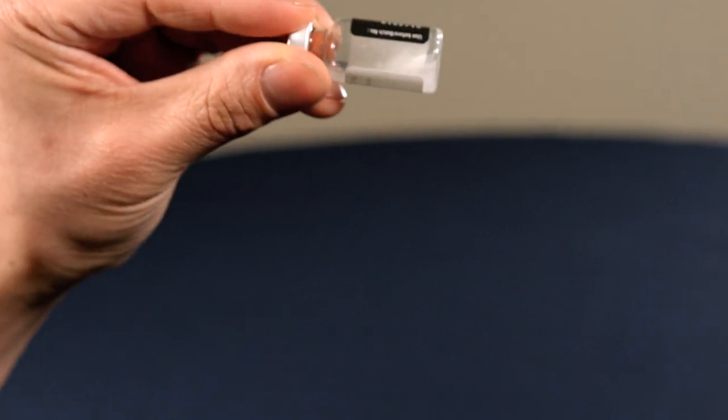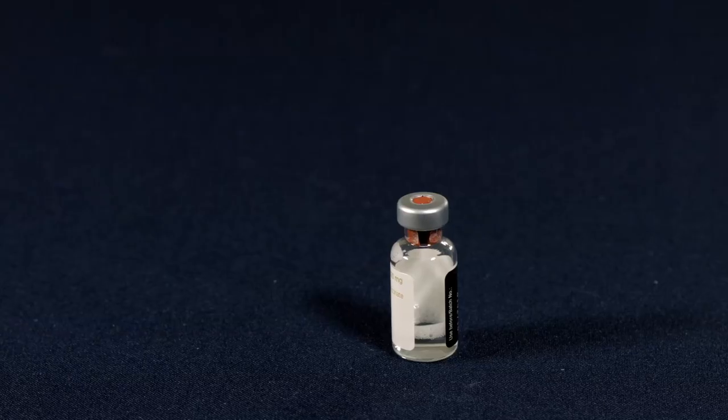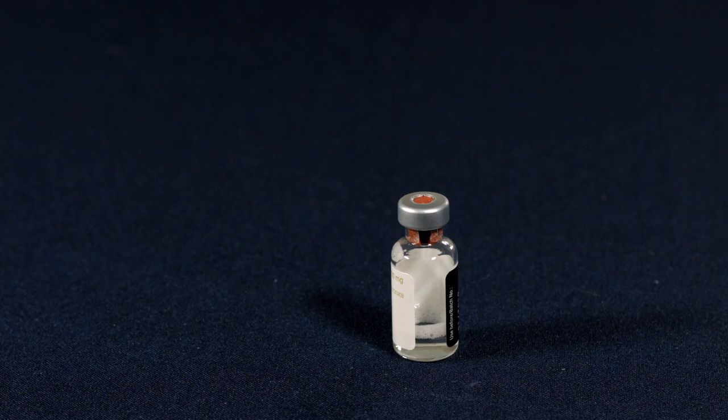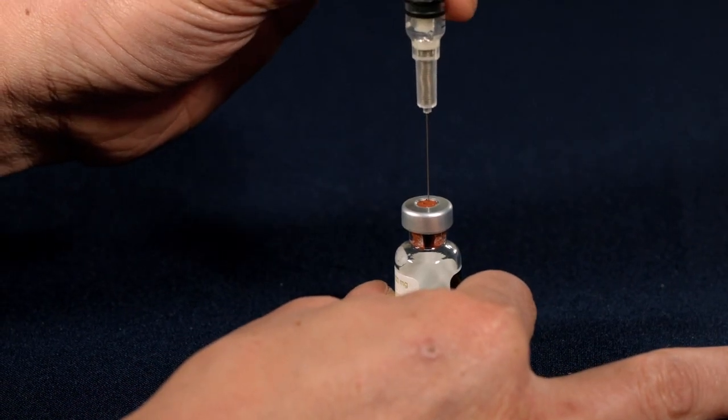Gently agitate the solution. Once the liquid has become clear, insert the needle back into the rubber stopper.